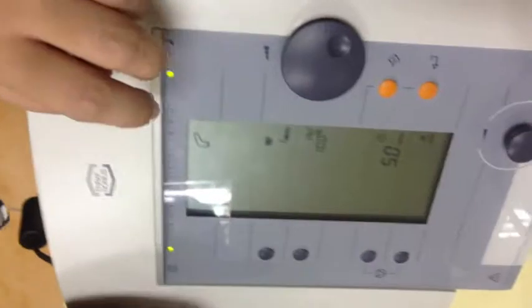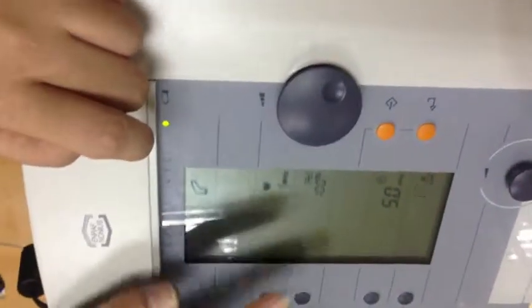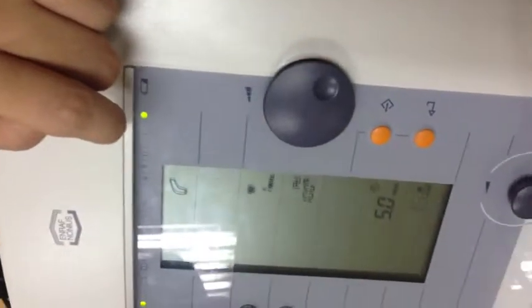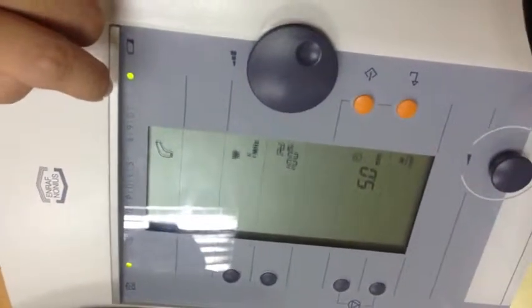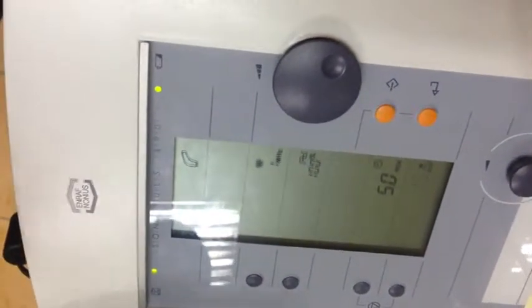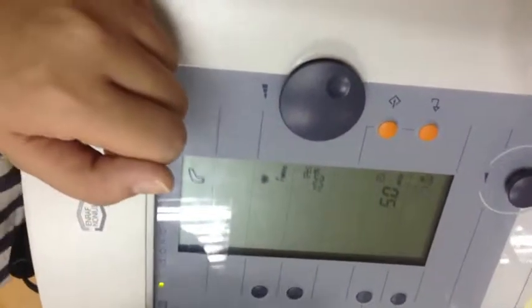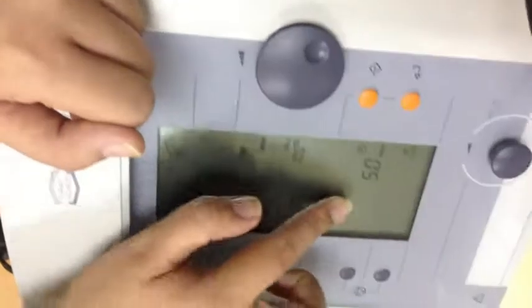So, ma'am, maximum na po sa machine yun. Yes, 100% lang siya. Tapos pag acute po, dapat po lower. Okay? So again, dahil ayaw natin ng thermal effect, gusto natin intermittent yung bigay ng sound energy. Okay? And then, if you want to adjust the time, so normally nakaset na naman siya ng 5 minutes.